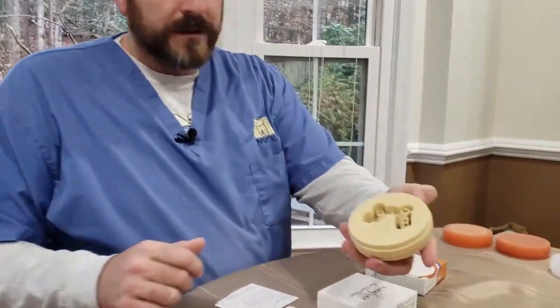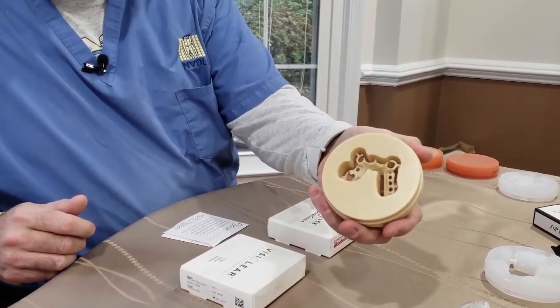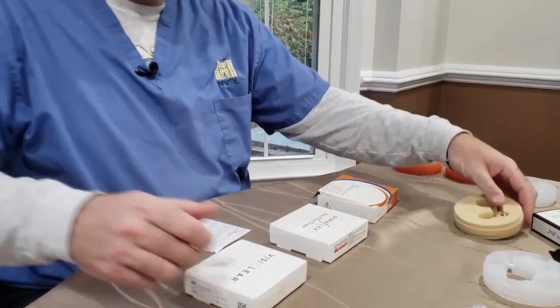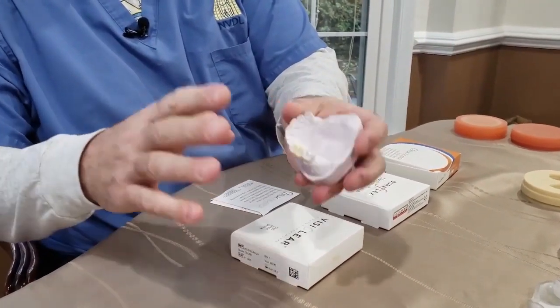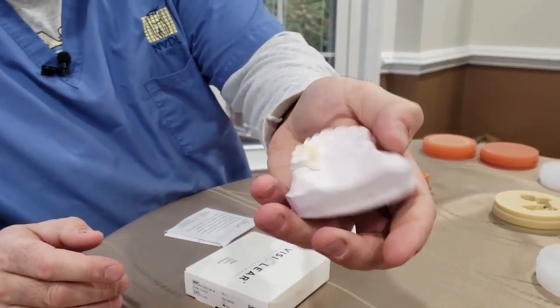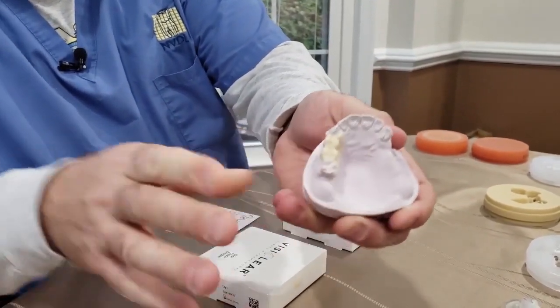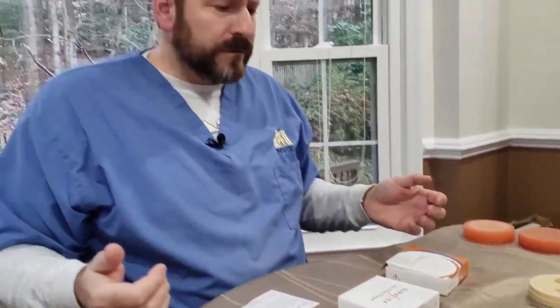It really makes for an ideal choice for temporaries, so you can really use it in every department of your lab. Some examples here: the tooth-colored version is an A2. You have a framework there that you'd apply acrylic saddles to, just as you would a metal frame. Here you have a unilateral where the teeth are all part of it and it would snap into place. It's a really universal, semi-flexible material.